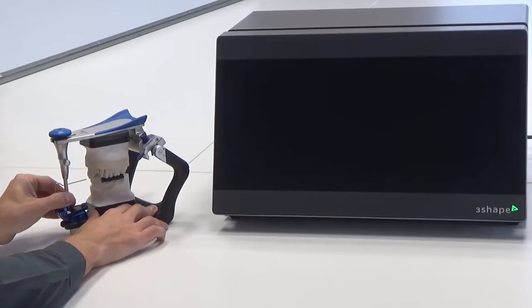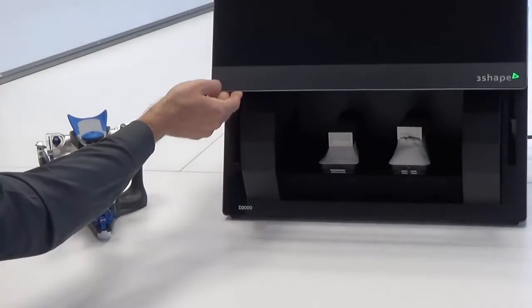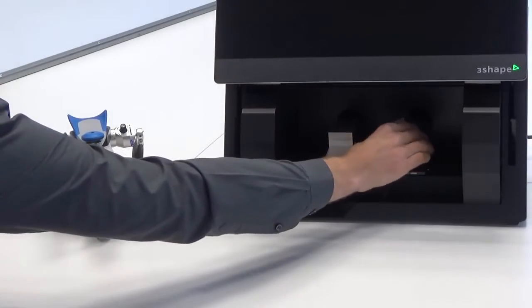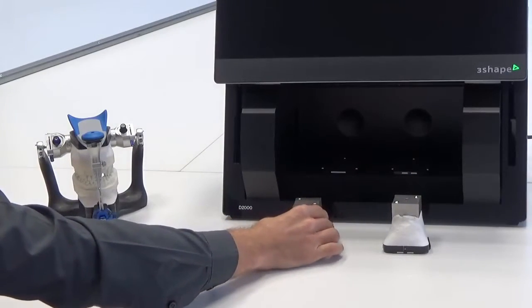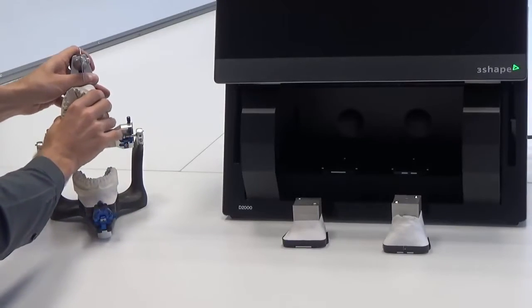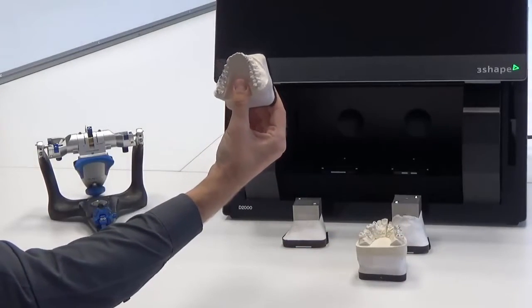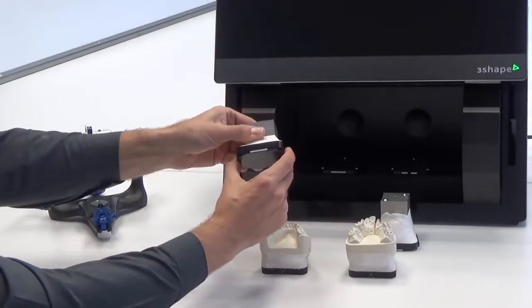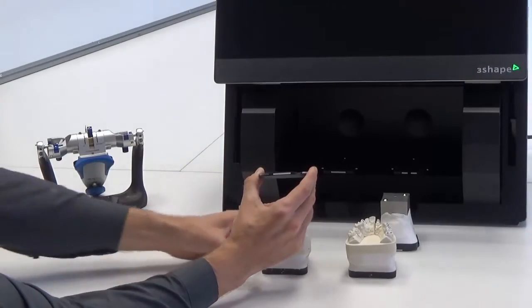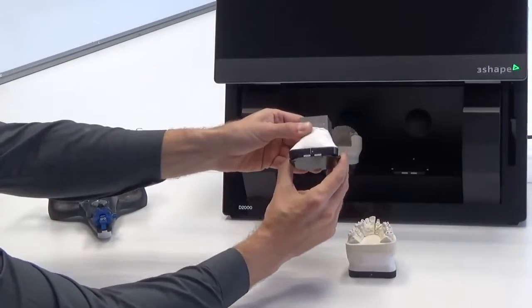You can check the occlusal contacts using occlusal paper, and then use the contact points as reference points in conjunction with the digital scan. Remove the Occlusal Transfer Calibration object from the scanner, set the mounted models on transfer plates and insert the models in the scanner. A height adapter is not required during that process. The lower model should be set on the left side and the upper on the right side.